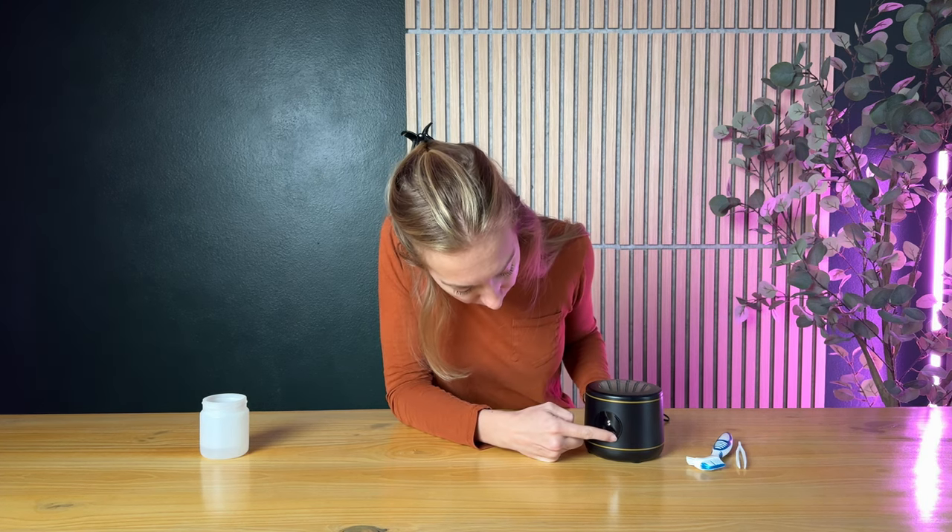I do know that there is a 30-minute automatic shut-off on this so that it doesn't keep running all day, but they do say in the instructions not to run it for more than 20 minutes at a time. Because I just have one item in here and it's not that dirty, I'm just going to press the power button and let it run for five minutes. I hear a little bit of a buzzing sound, but honestly it's so quiet I'd be surprised if you could even hear it through the camera. Let's wait five minutes and we'll come back and see how it looks.